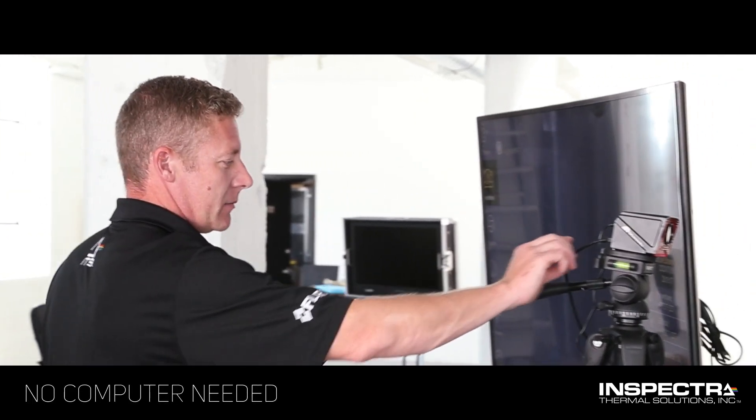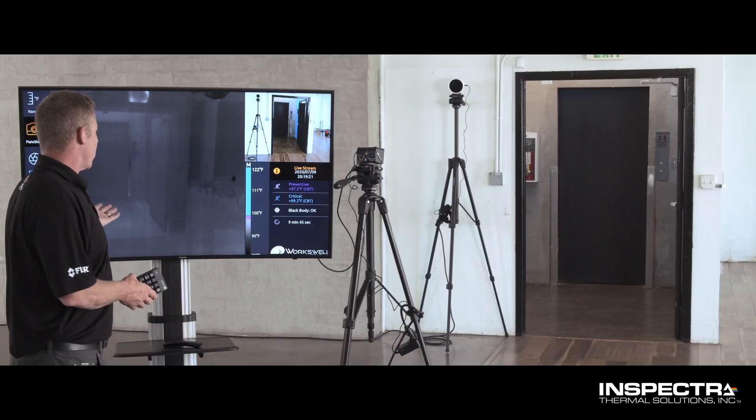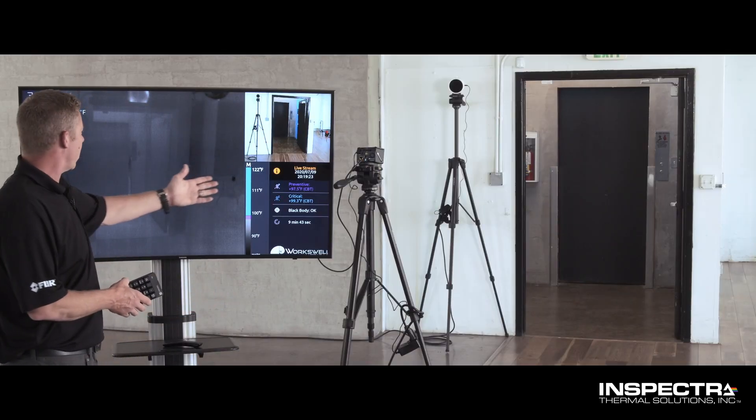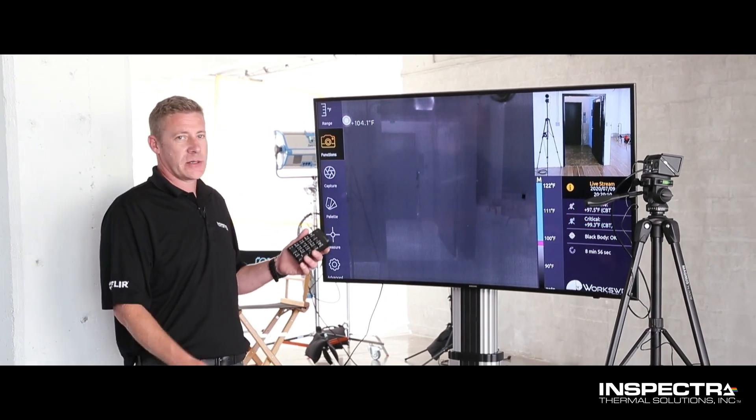Take a look at the HDMI cable — it's now connected to the screen so we can see everything with the onboard software. I'm setting up the software system for your camera unit, the Metacast here.